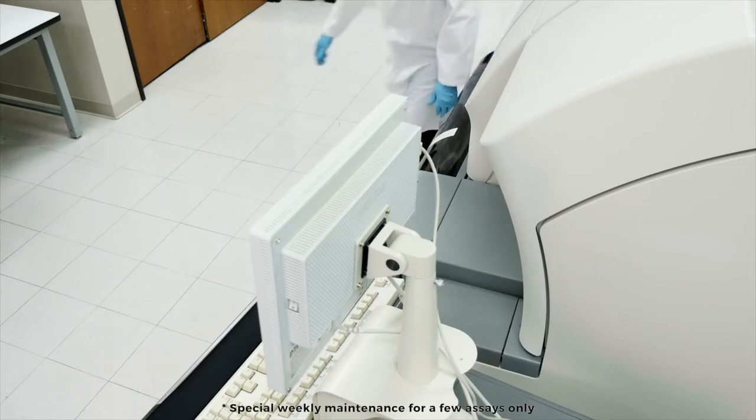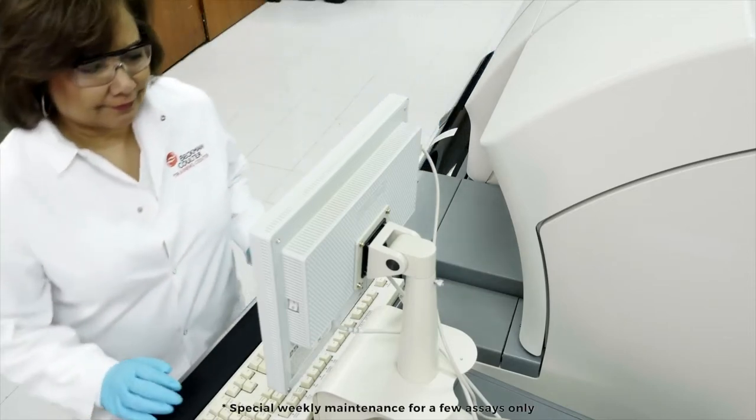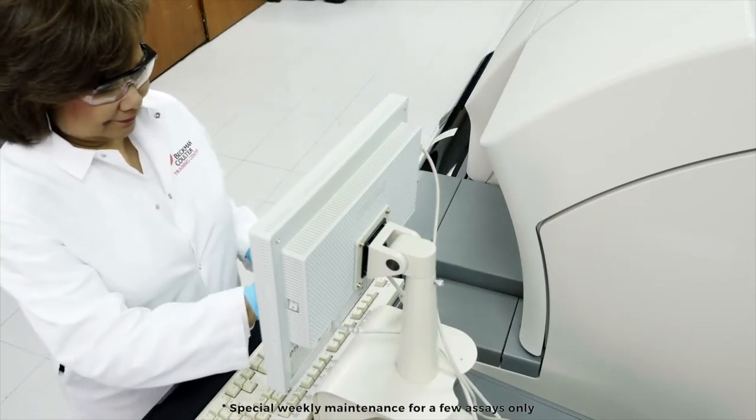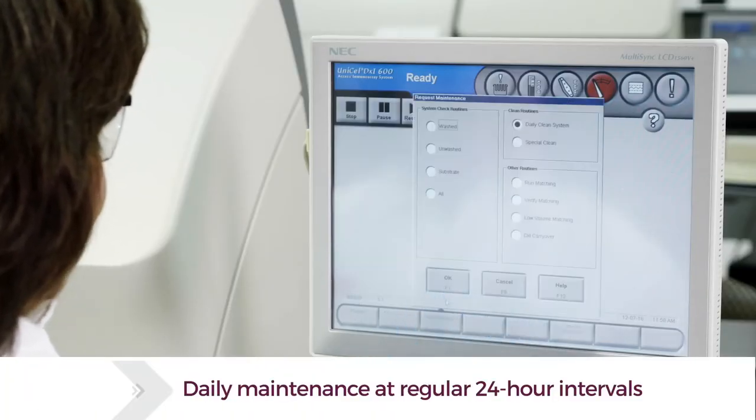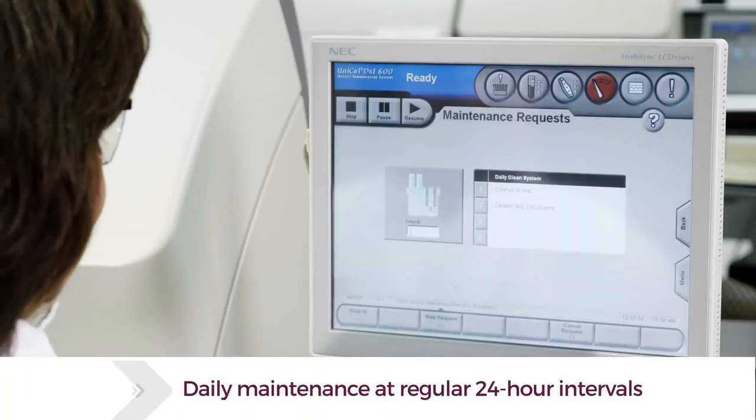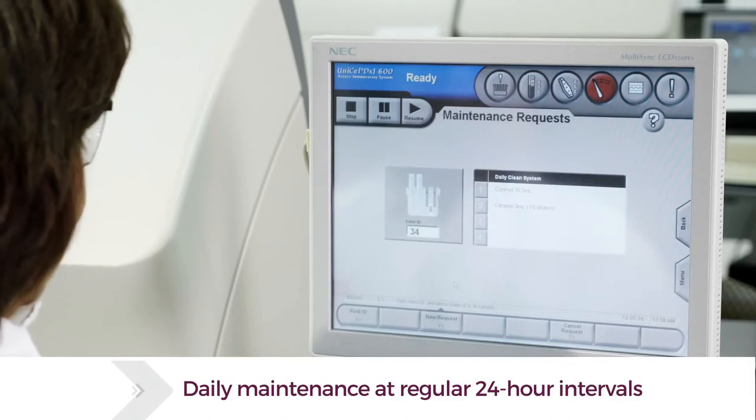Generally, maintenance is performed daily, as well as at the scheduled 5,000 and 10,000 test count intervals. For daily maintenance, operators perform five simple steps which, combined, can be completed within minutes.